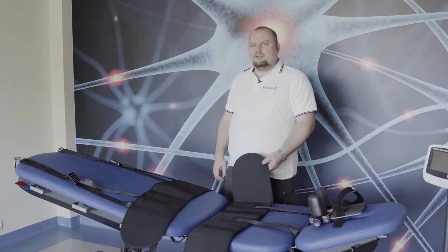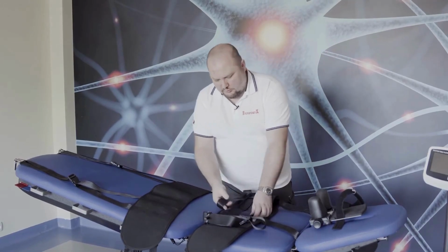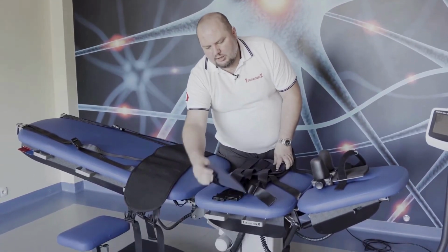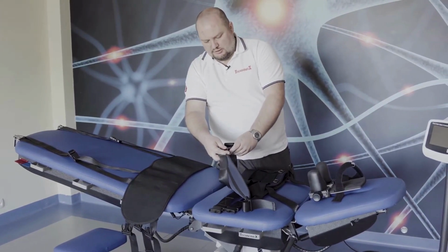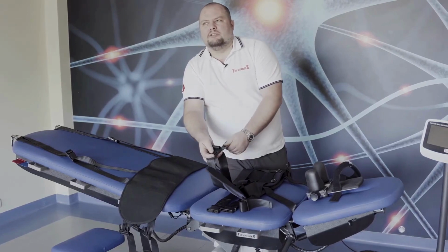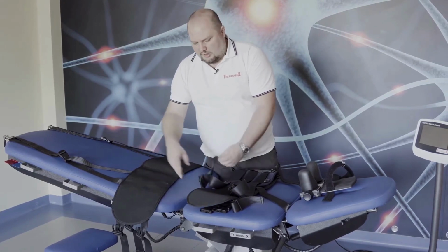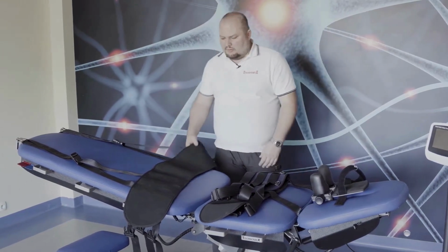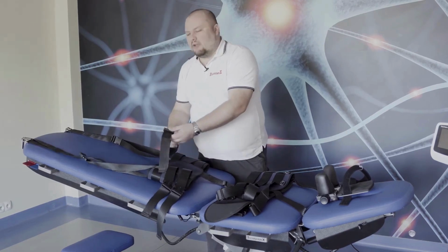The construction of both the thoracic and lumbar belt is connected and closed with 3 strips. Why is that? First of all, it allows us to adjust the force for different patients, different force on different parts of the thoracic cage or pelvis. It's quite important in a situation when the upper thoracic strip goes on the breast, especially in women, or at the lumbar belt when the lowest strip goes over the greater trochanter and may cause irritation.